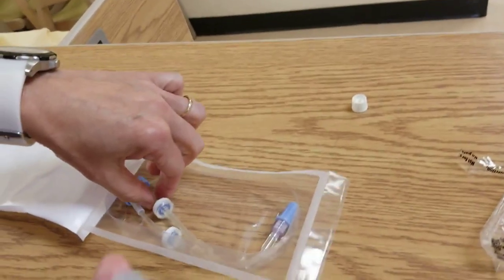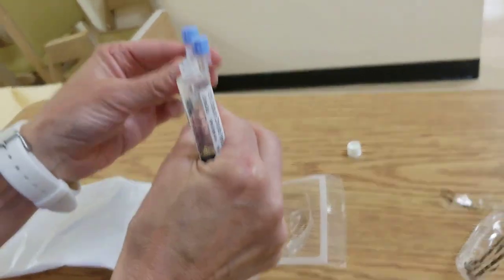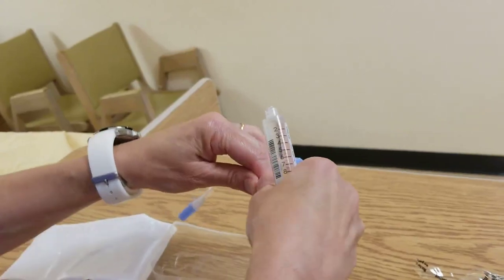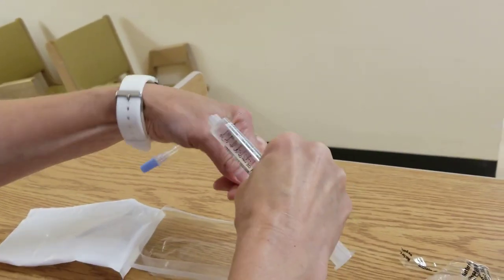And these extension sets have filters to prevent the backflow of any medication. I personally like to flush them both right away.